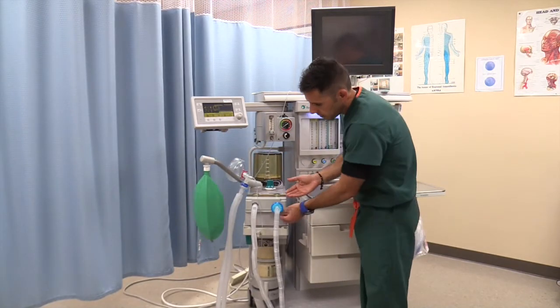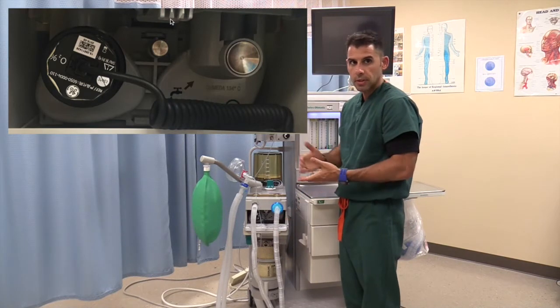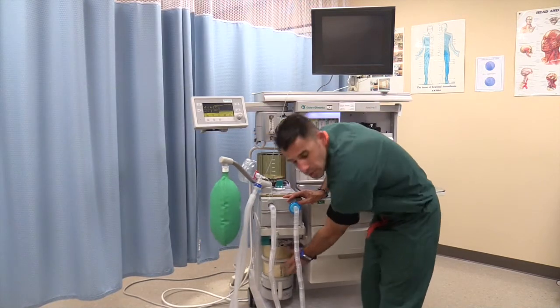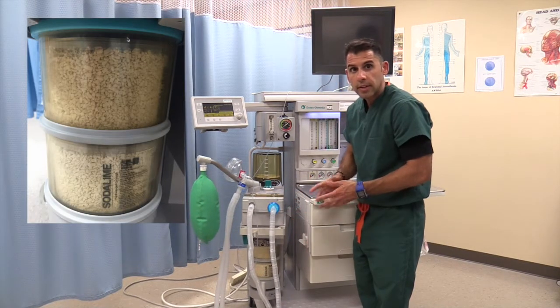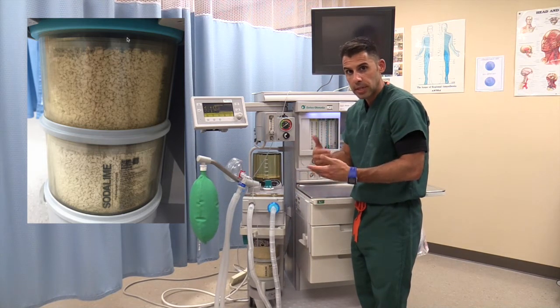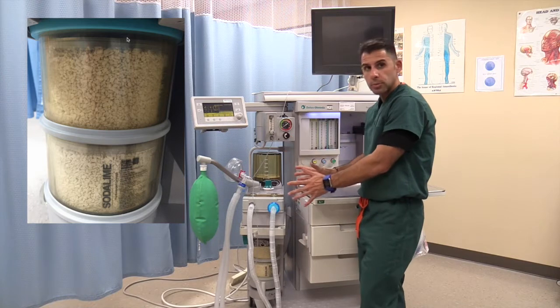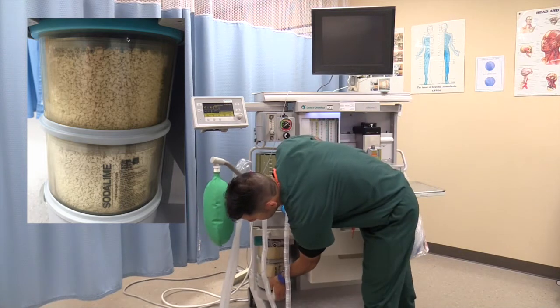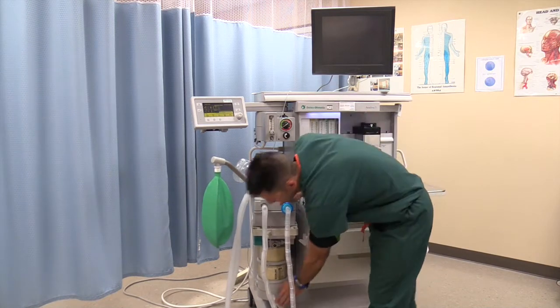We also have a little compartment that opens and houses your oxygen sensor — we'll go over that in just a second. Moving down, we have your sodalime. I can see the sodalime is white, meaning it has not turned purple, so it is still good. If it turns purple, it can no longer filtrate the CO2 on the expiratory side. As we expire CO2, the machine filters that expiration so the gas can be recirculated. You can change the sodalime canisters by pressing a button and dropping them down.